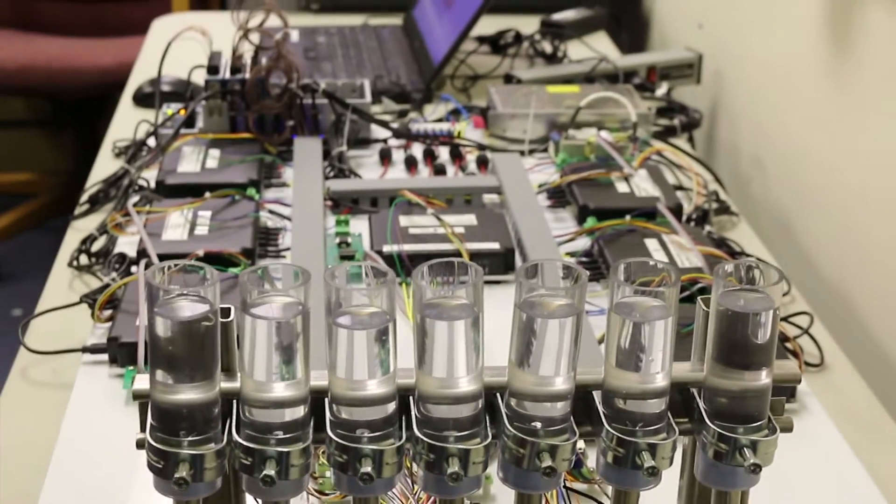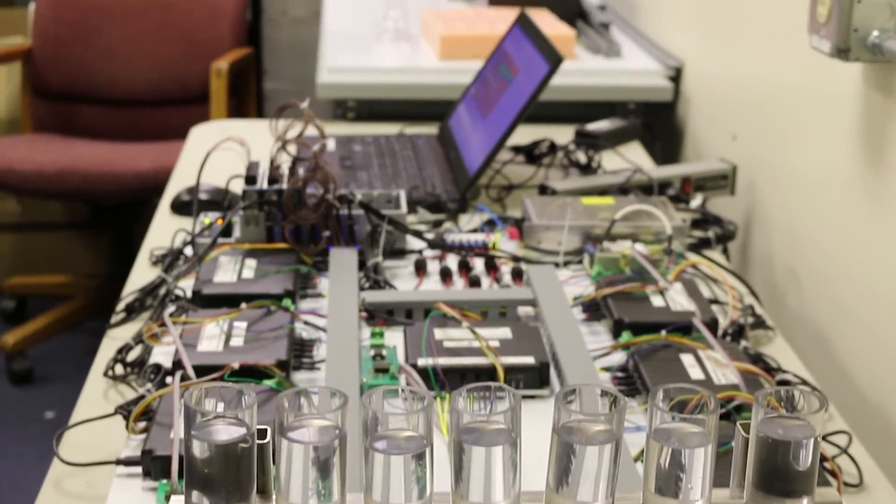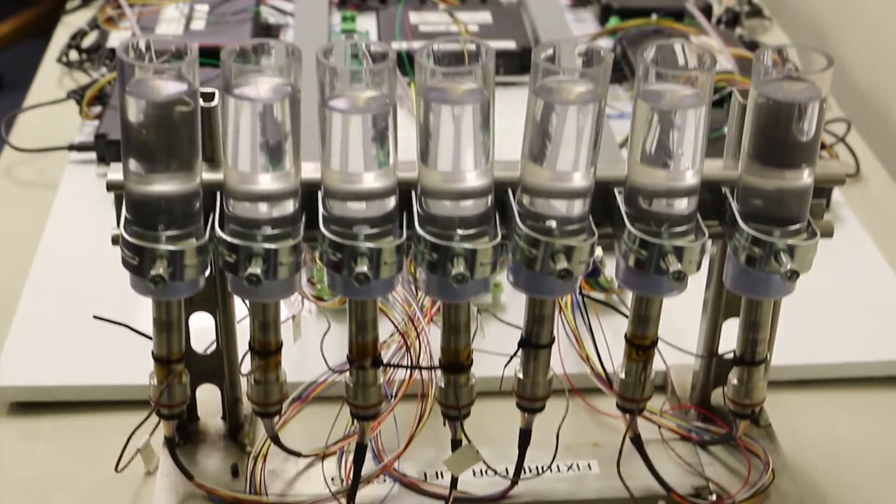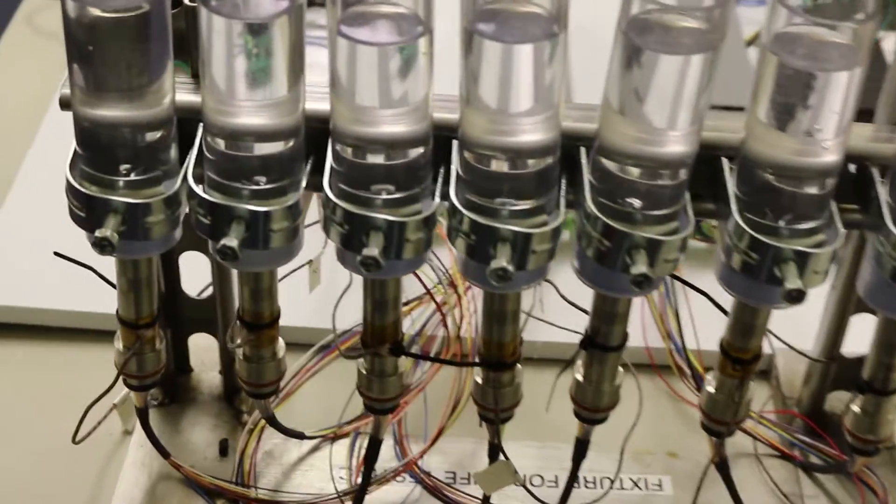By running for long periods of time in custom profiles and interchanging the high temperature, moisture, pressure environments of sterilization and operation, we can validate the motor for its eventual use and robustness.